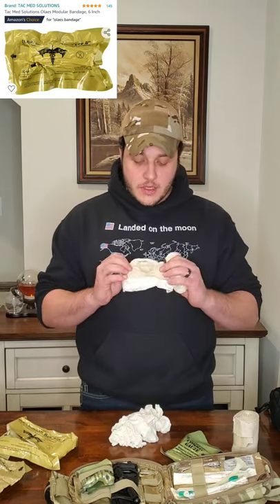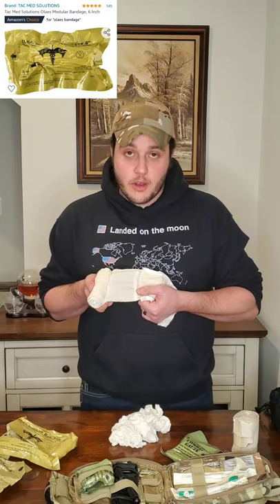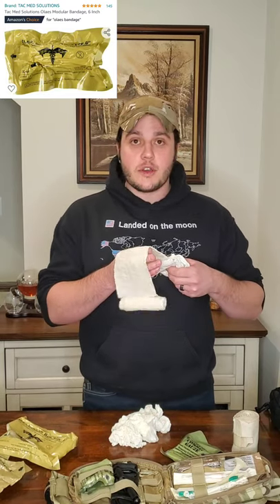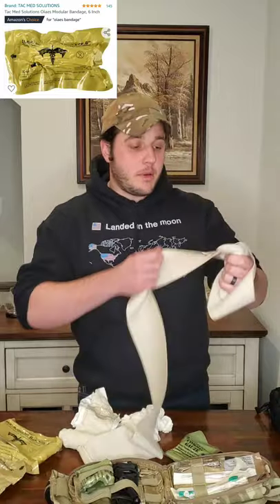It also has the plastic pressure cup that applies direct pressure as you wrap over it. Something commonly overlooked with ACE wrap — the Tac Med guys added small lengths of velcro every 12 inches on the bandage, so as you unroll it, it catches on that velcro. When your adrenaline's pumping and someone's bleeding out, your hands do crazy things. If you drop the bandage while wrapping, it only unrolls to that next velcro length and stops — unlike traditional ACE wrap that explodes into a pile.